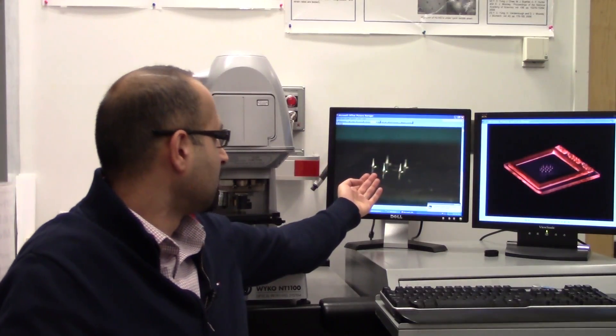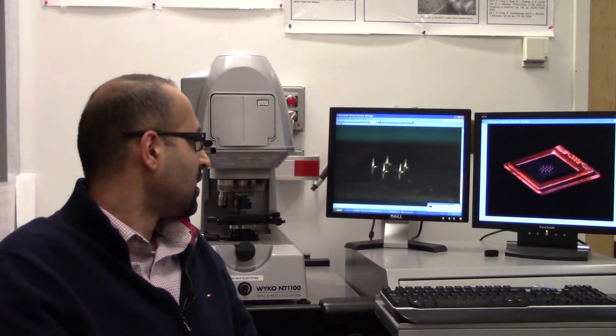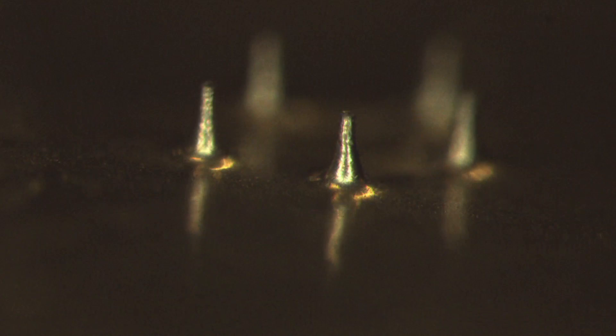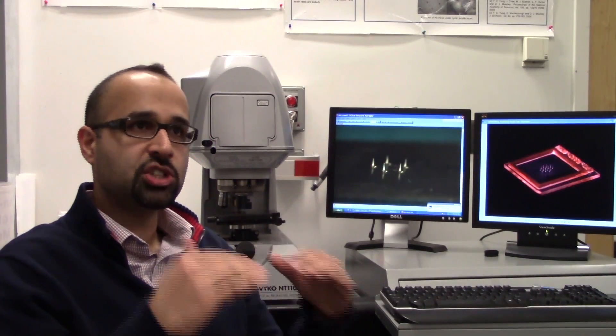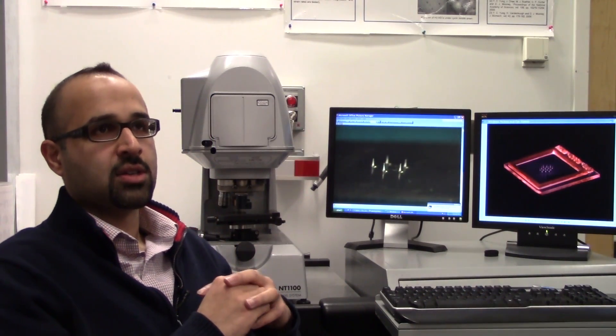This is an image of a micro-needle array. This is essentially a cone-shaped structure, not so long, typically less than one millimeter. The idea is we want to inject the drug into the epidermis. In this whole procedure we're not actually touching the nerves in the dermis, so that's why the procedure is painless.